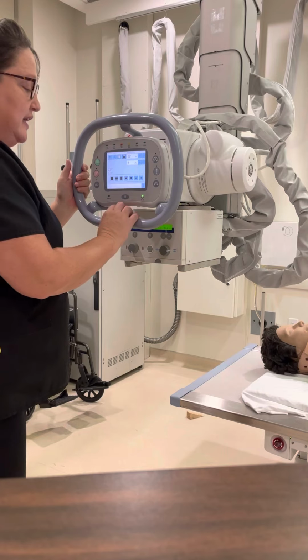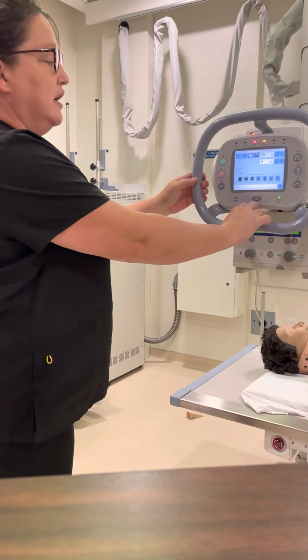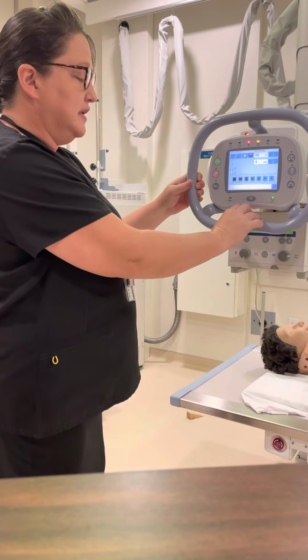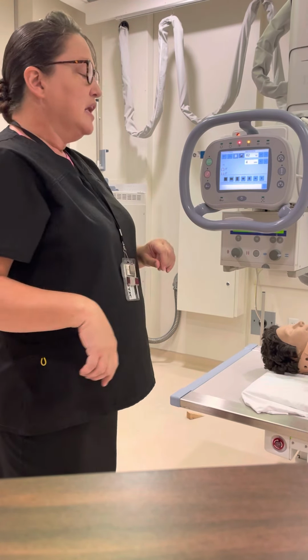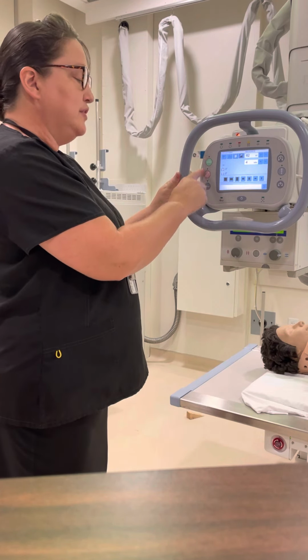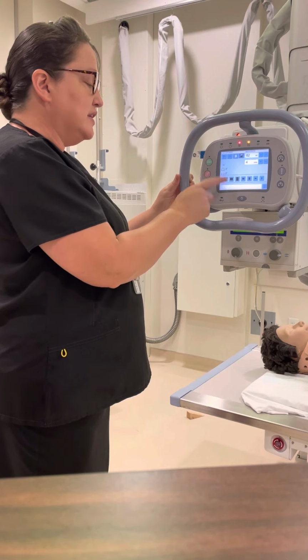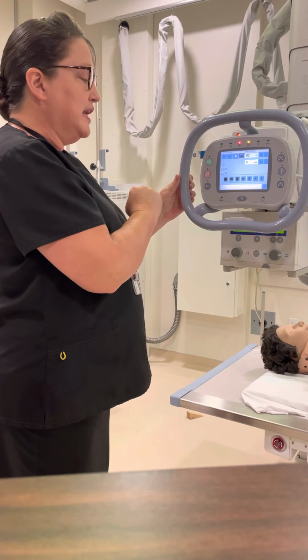So again, this here is an all release button, which for just moving it across the room, it's okay to use this button. If you're aligning, I need you to go ahead and align using the transverse and horizontal. Green is horizontal, pink is transverse, okay?